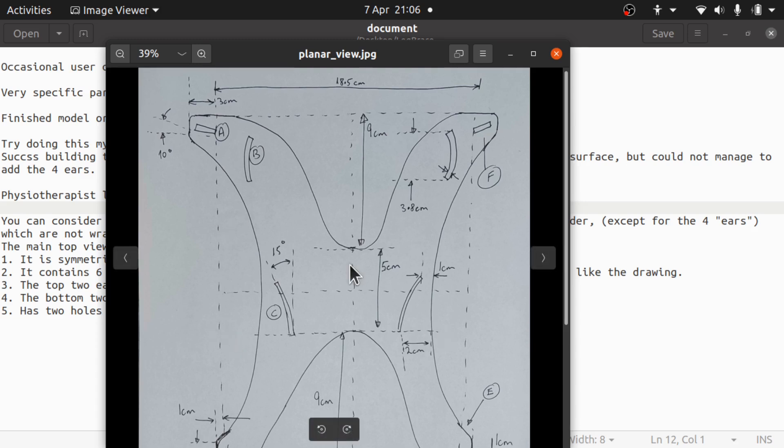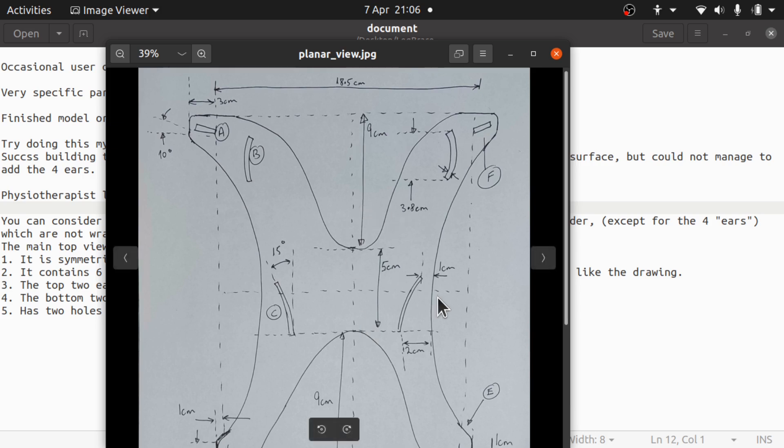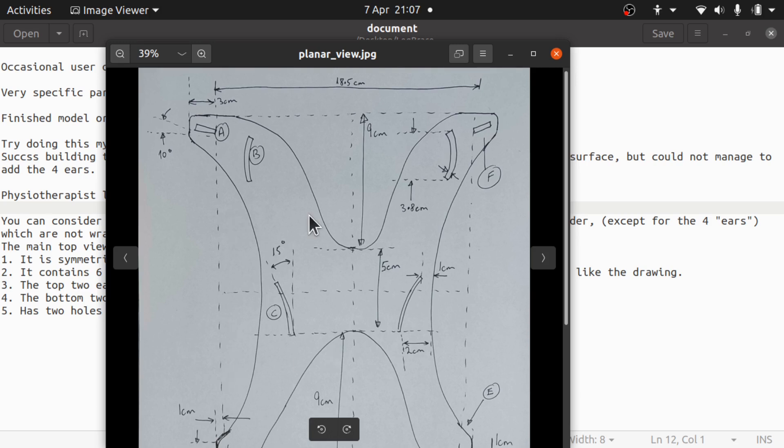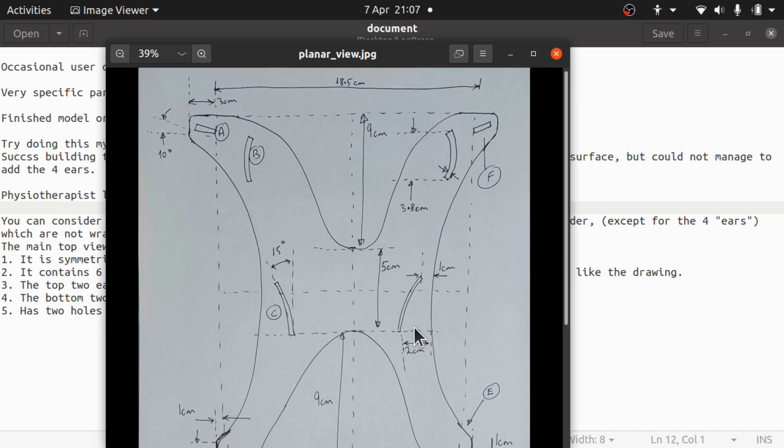We could even do a quarter of a cylinder, but I prefer to do half a cylinder because we can work on one side, one quarter, and we've still got a vision on the other side of how this can transfer over. We can do any mirroring across there if we wanted to, just to get an idea of how that's going to look. We've got some nice amount of dimensions.